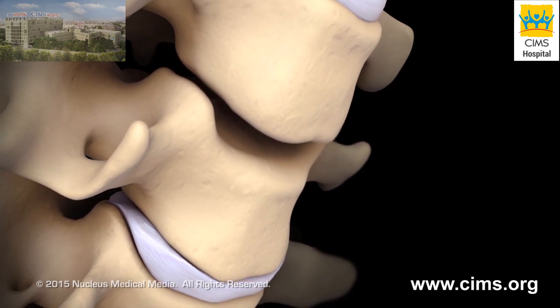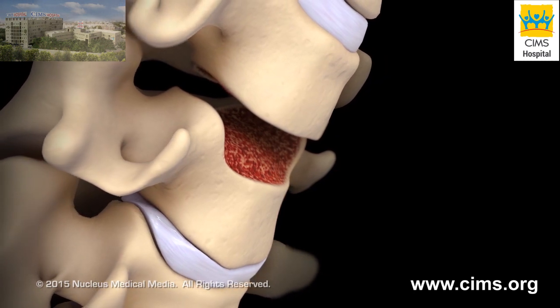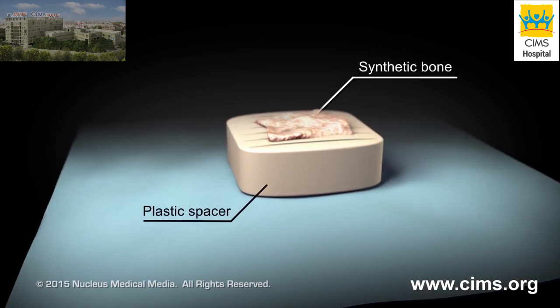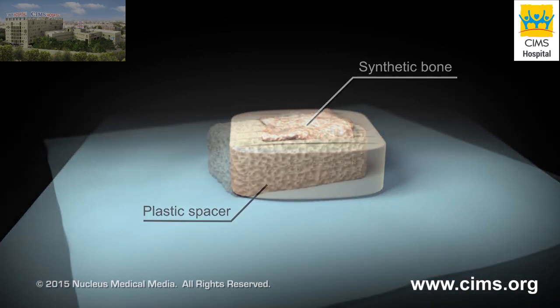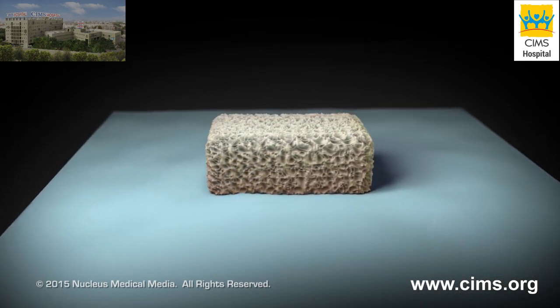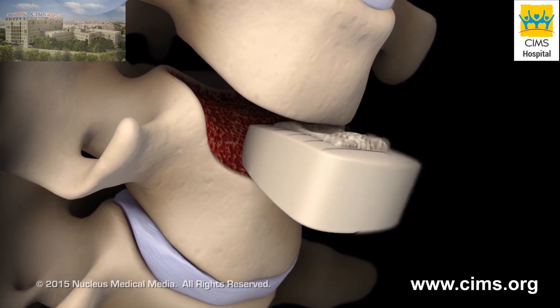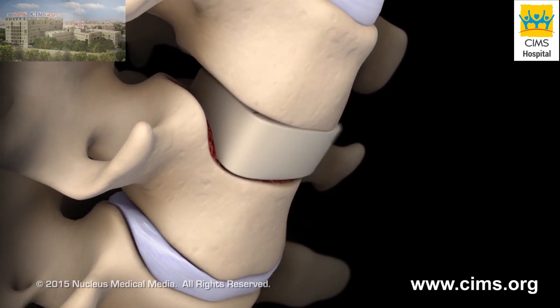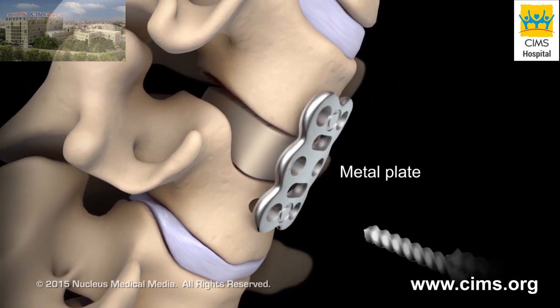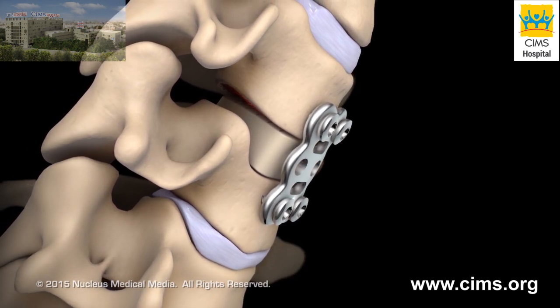The vertebral bodies above and below the removed disc will be trimmed to allow placement of a bone graft. Your surgeon may use a plastic spacer filled with synthetic bone graft, or bone graft may be taken from another donor before your procedure. The bone graft will be placed between the two prepared vertebrae, allowing them to fuse together. Your surgeon may attach a metal plate with screws to keep your spine stable while your bone graft assists in fusing the vertebrae together.